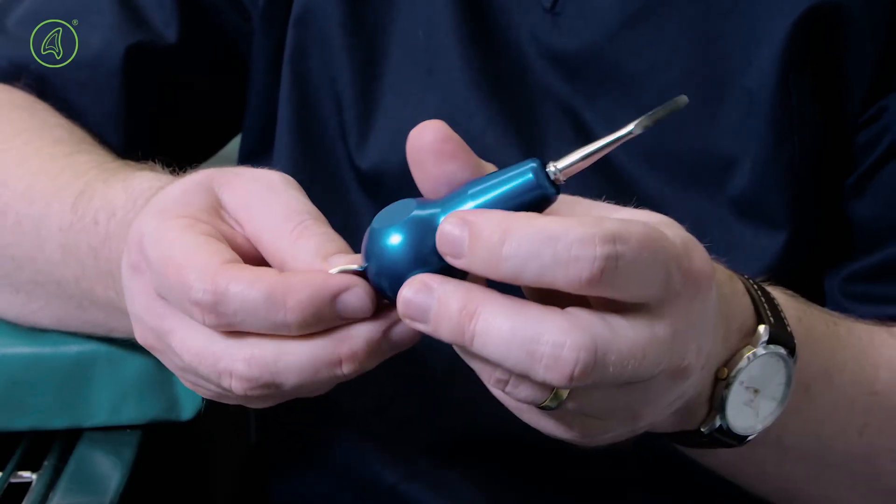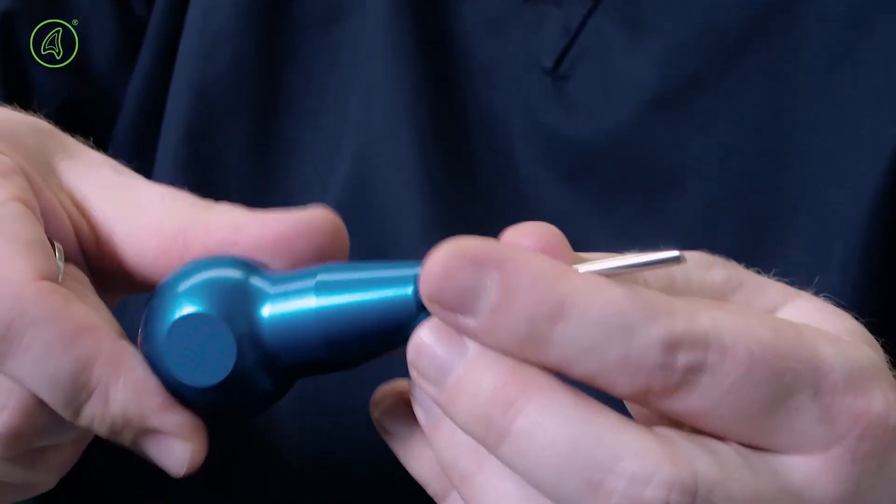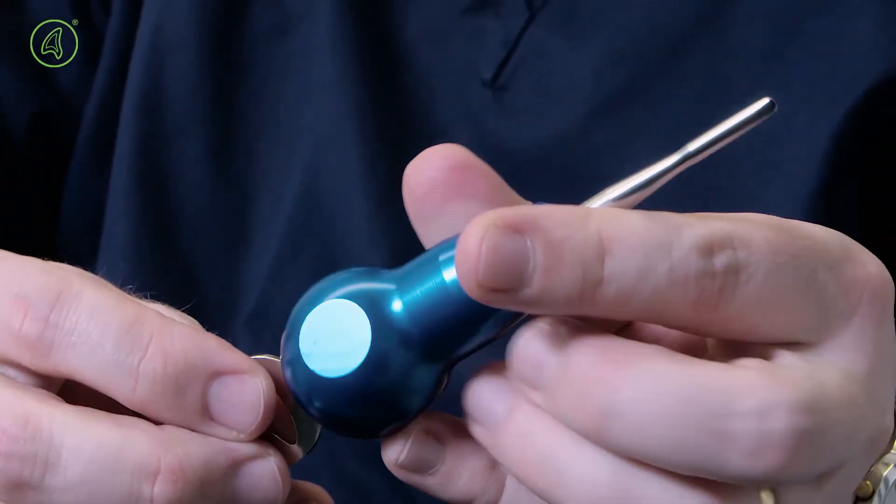So we thought, what if we made an instrument where the cutting blade could be replaced like a scalpel blade?